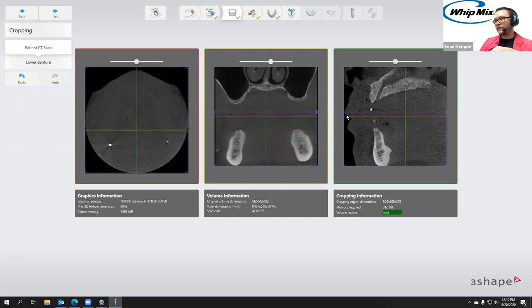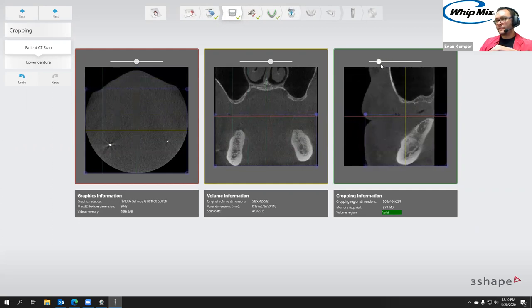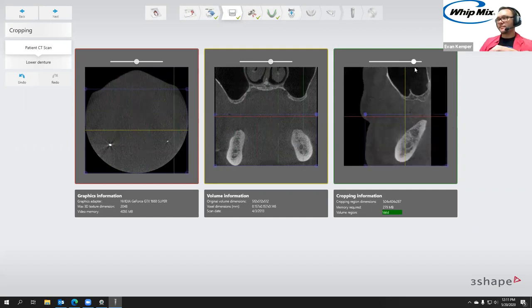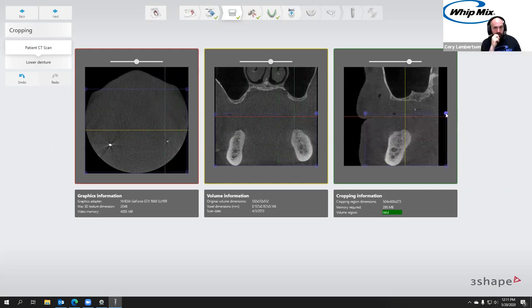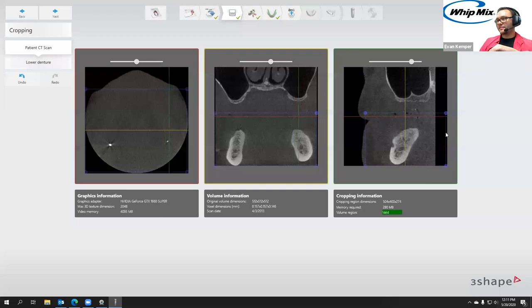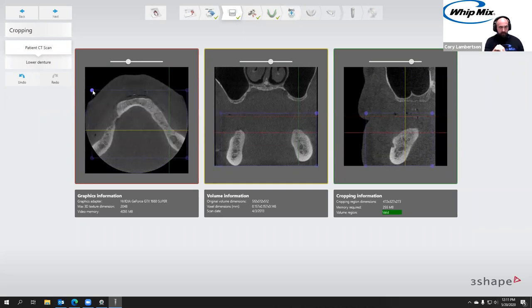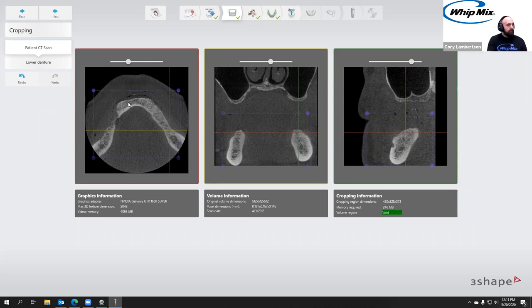That looks good. We're going to look at each view. This one looks like they did an upper and lower denture at the same time — the 3Shape sample just doesn't have the upper, but it'd be a repeat of the process. Whenever the end user is going through this, if they do upper and lower at the same time and only want to do the lower, make sure to be careful with your cropping. Also, just to touch on — we want to make sure our volume region is valid and that we have enough VRAM on our video card. The edentulous workflow will use more than two gigabytes potentially, so you need at least a four-gigabyte card to do all the workflows in Implant Studio.